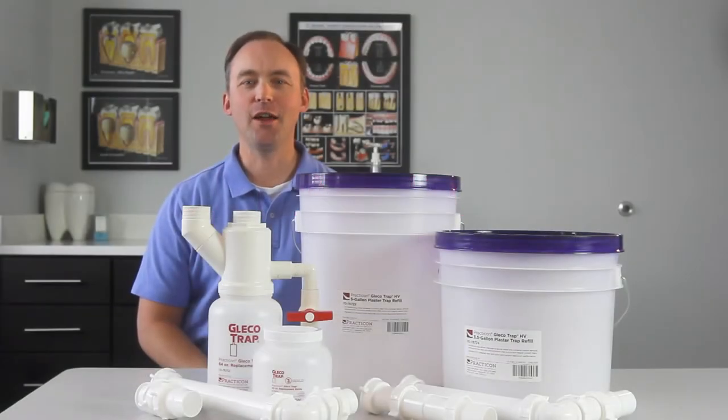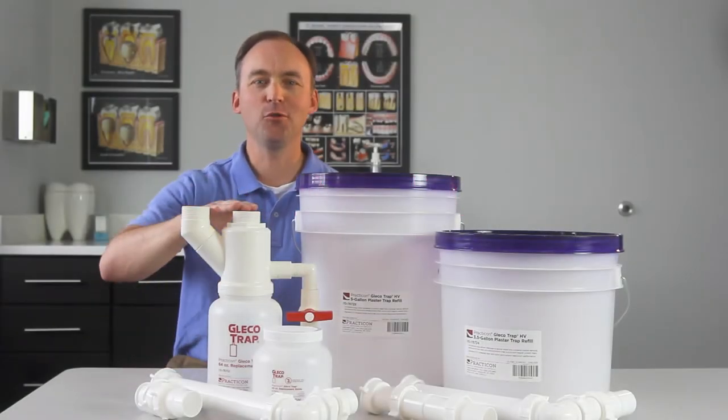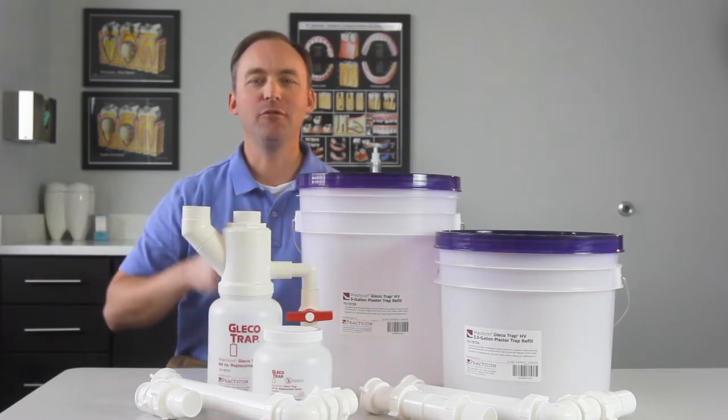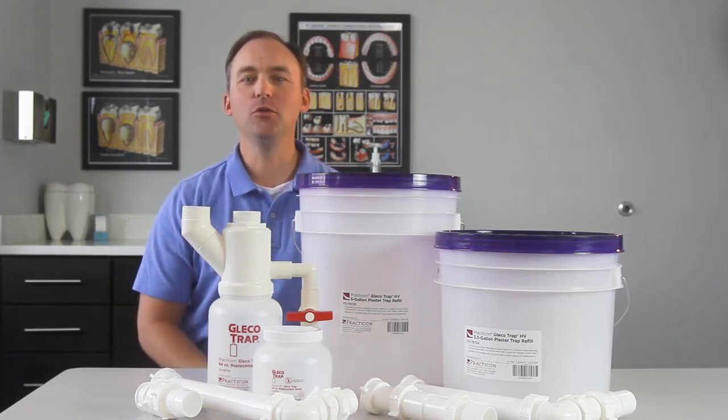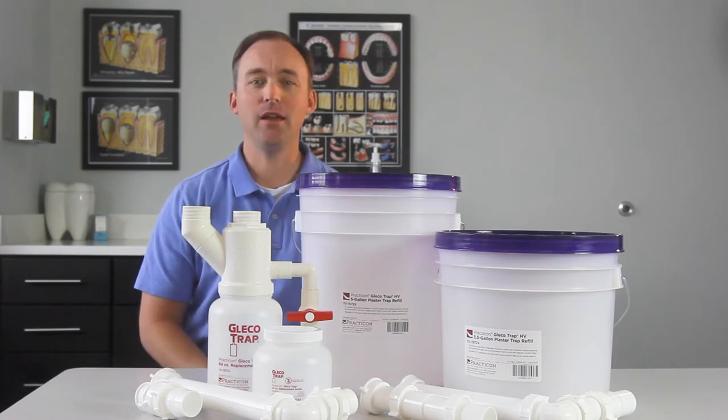Hi, David from Practicon here to tell you about the original GlecoTrap Plaster Trap. Invented by a plumber, the GlecoTrap revolutionizes the age-old chore of sink trap retrieval and plaster trap maintenance.